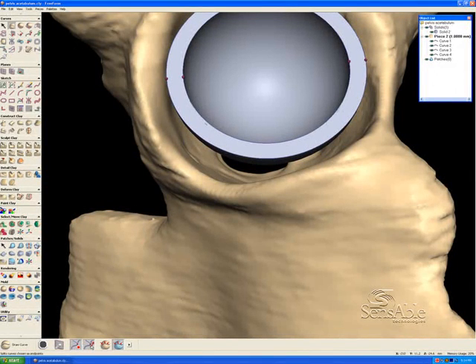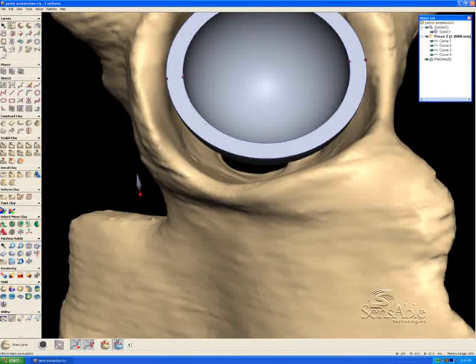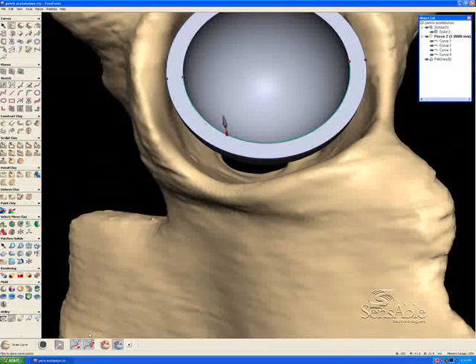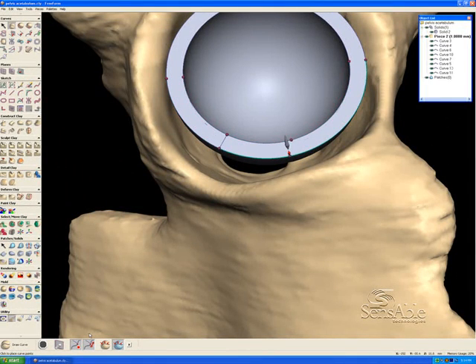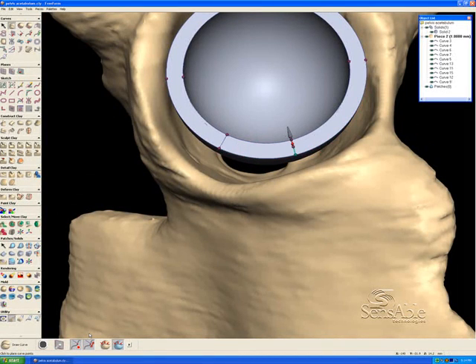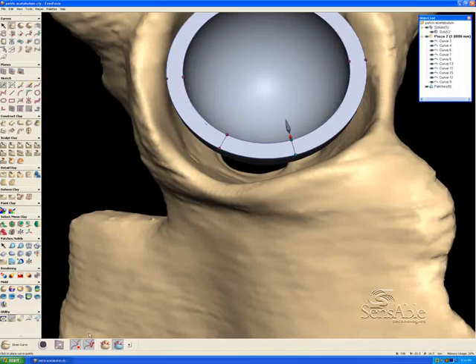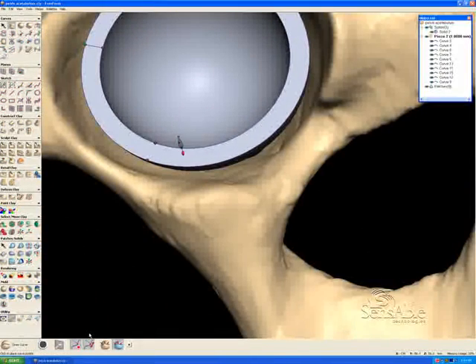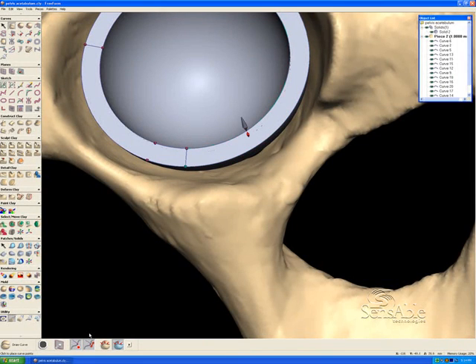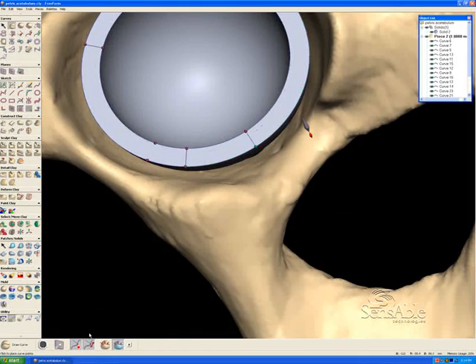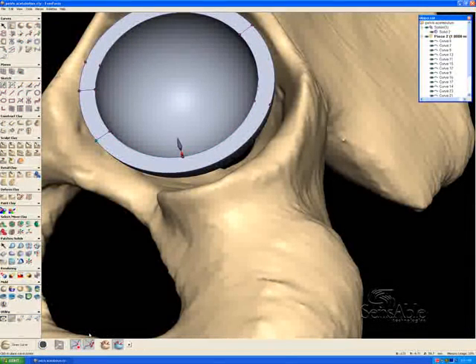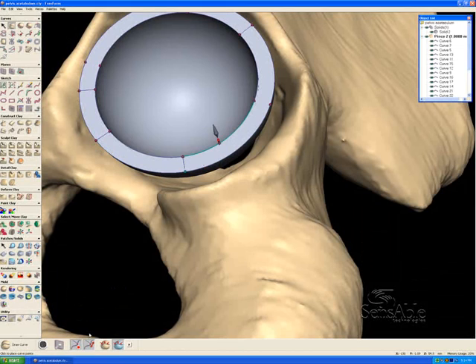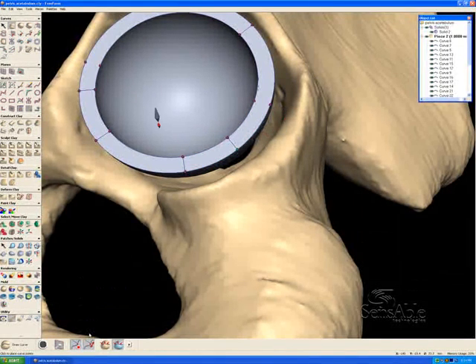I'm also going to specify that these are going to fit to the surface of this solid as well as split any curves that they come in contact with. So here I'm going to make one click, two clicks, and one click, two clicks. And you can see as I highlight these curves here, just by mousing over them and touching them, that there are four individual curves now. And I'm going to do the same thing over here. These are representing the spots where the tabs are going to come off of the cup, the implant. And I'm going to do one more over here. So it's very fast to lay out the position of where these tabs are going to come from.